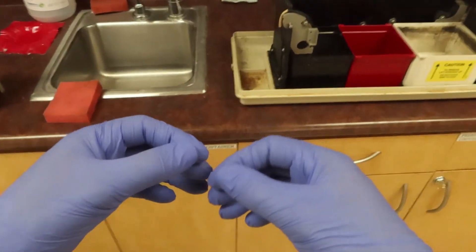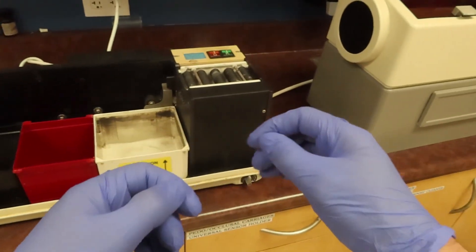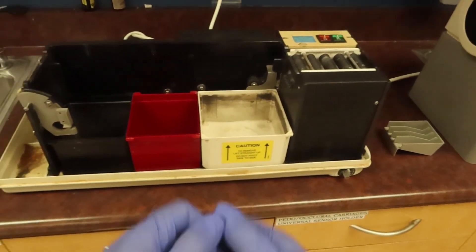On the next part of this video, we're going to use our films, get it loaded into the system, and how to wait for them at the end so that we can properly mount them. Have a good one.